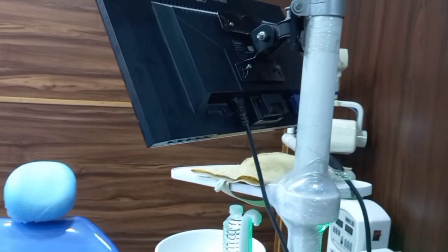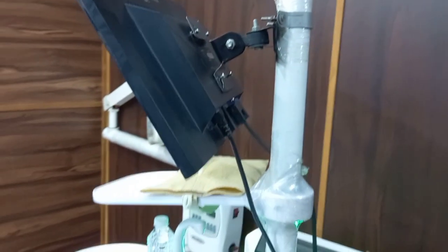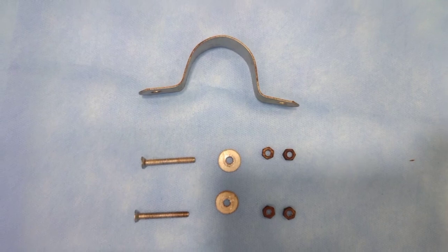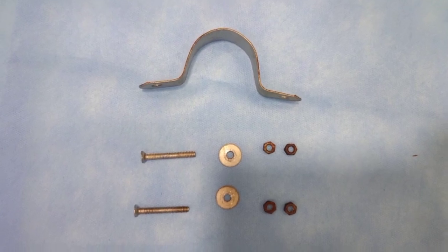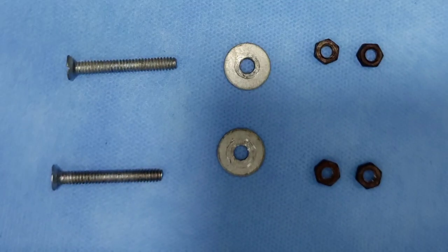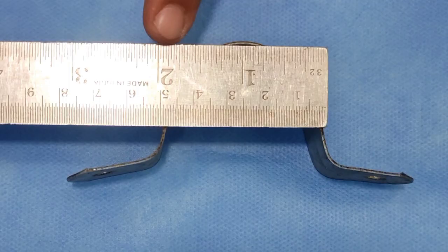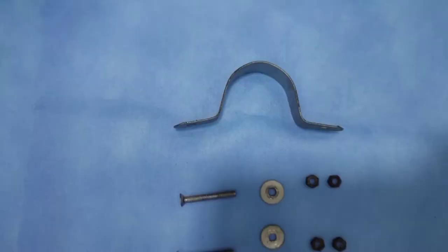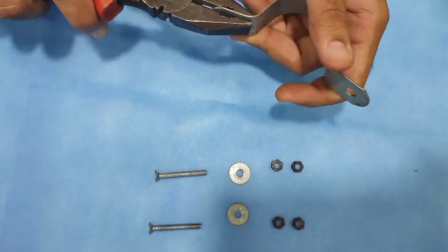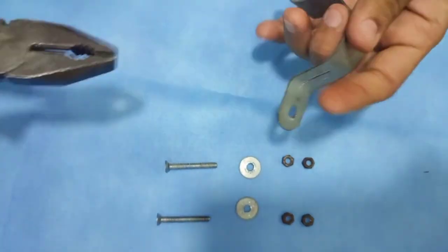As you can see on the screen, our aim is to connect an LED screen to our dental chair. The chair generally connects to the pipe that comes out from your spittoon, which has your LED light on it. The connection of the wall mount to the dental chair requires long two inch screws with washers and two nuts each, and a C clamp which is two inch in diameter. There is one modification we are going to do to our clamp — we are going to twist or bend the ends of it slightly outwards so that an angle is formed when you connect the screw inside.